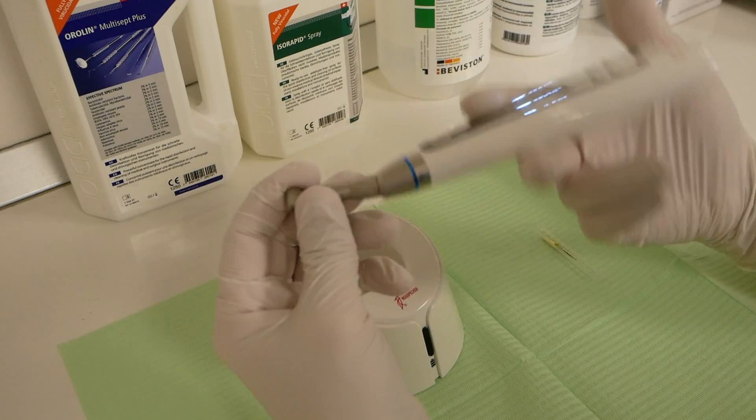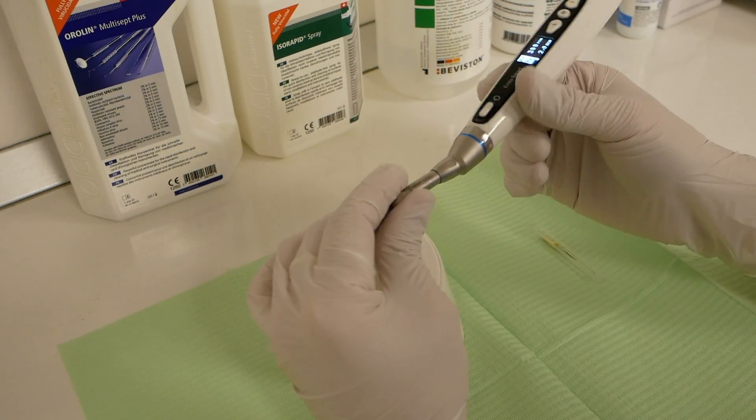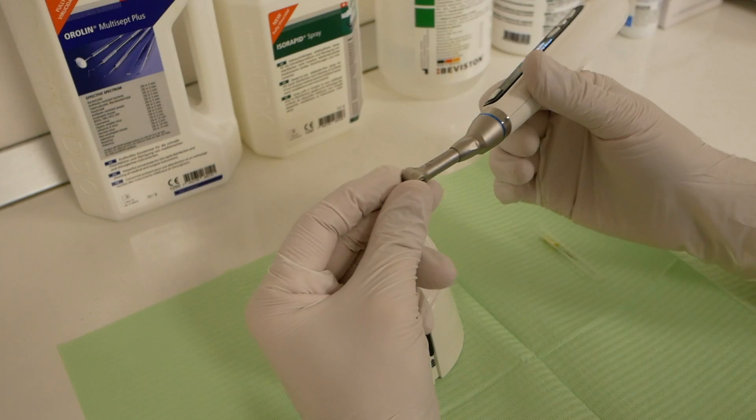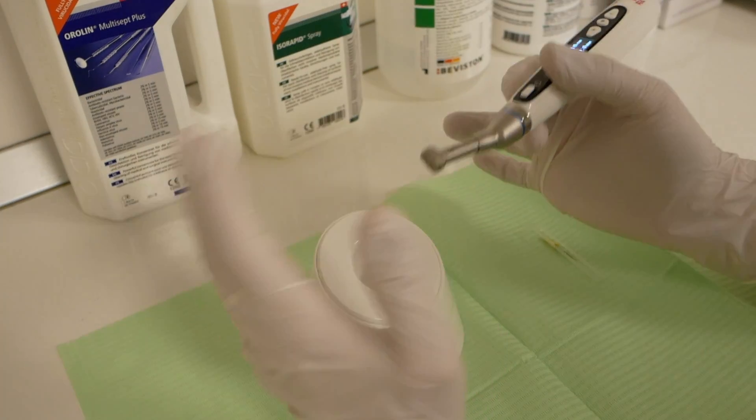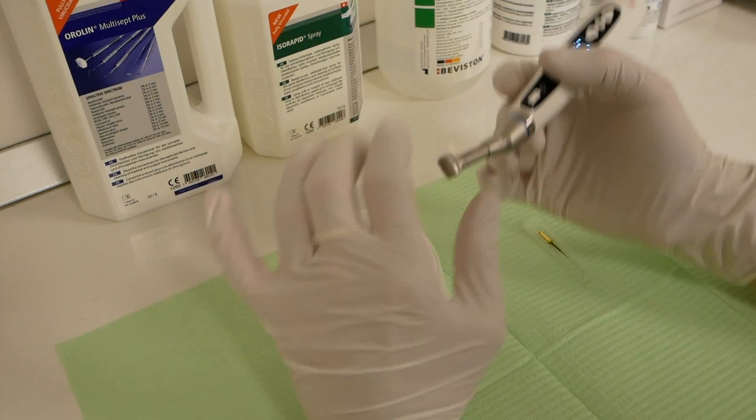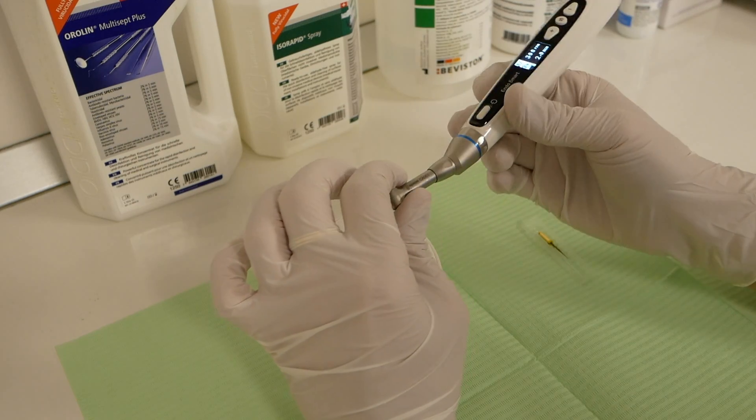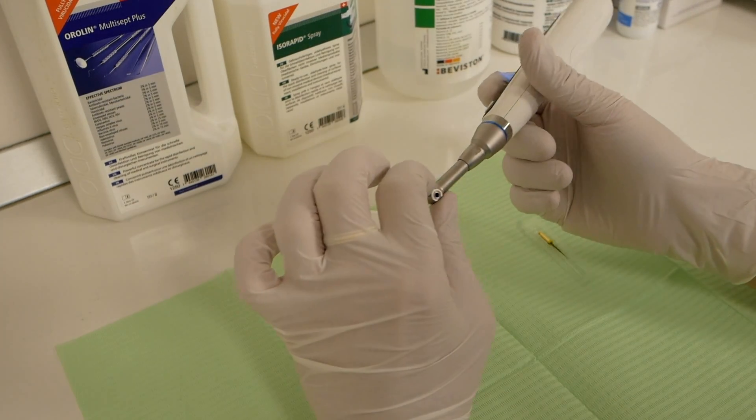The tip, the top part, is also pretty slim so you will have good access towards the back of the mouth, the teeth in the back of the mouth.